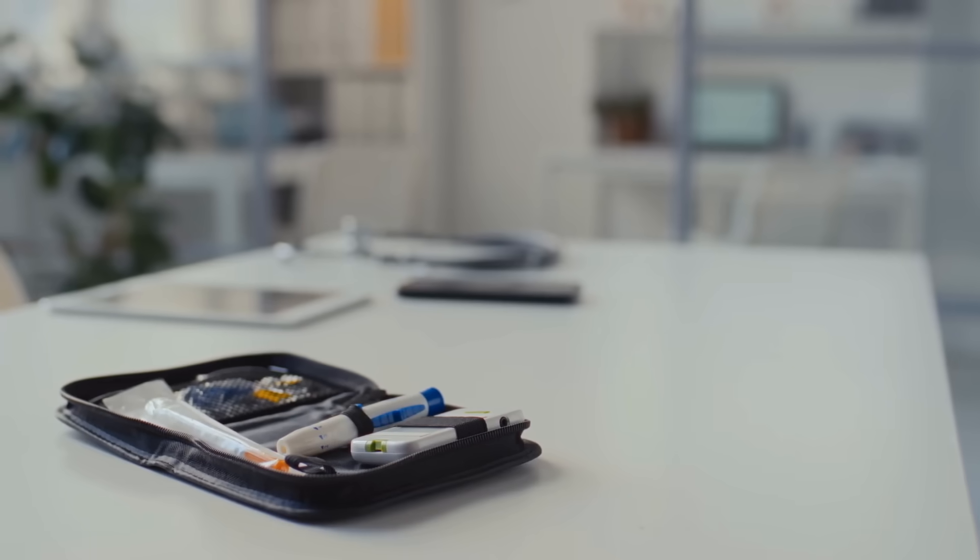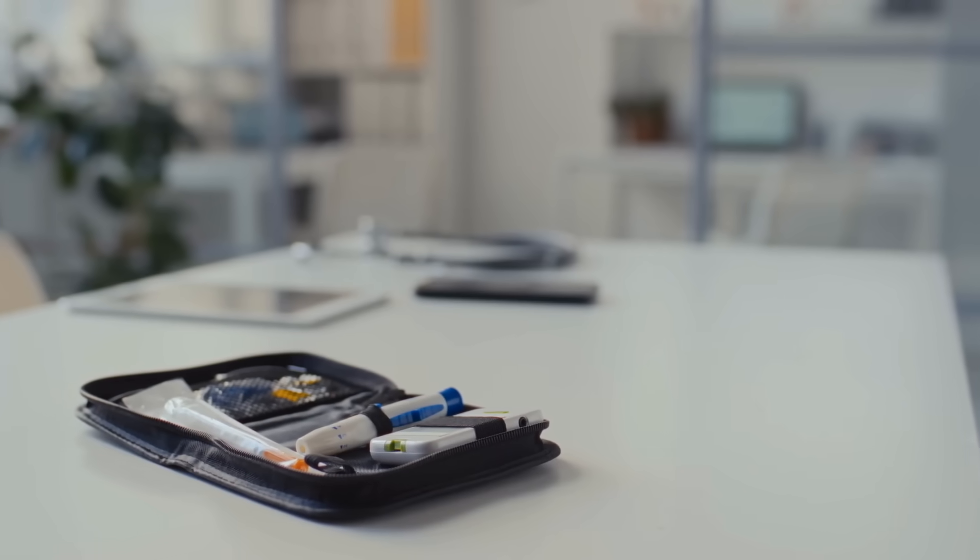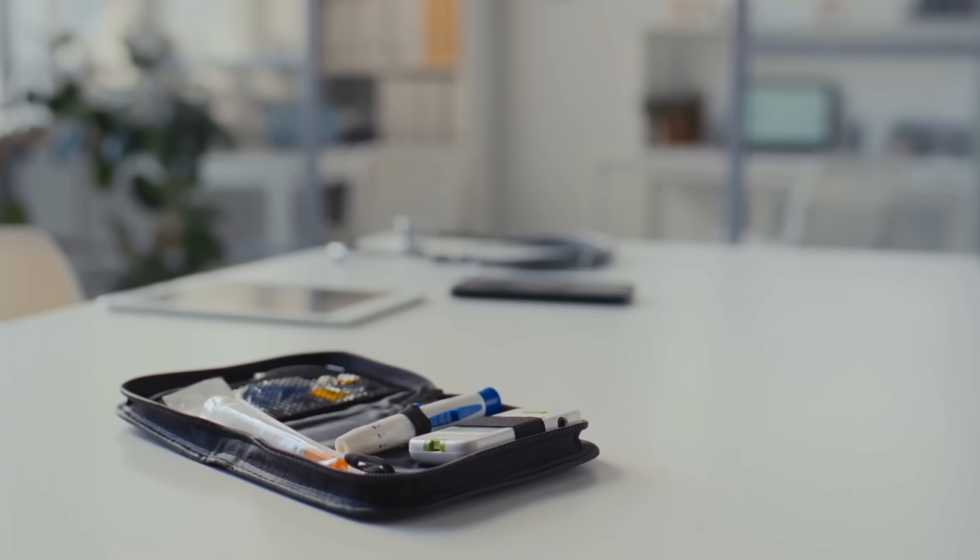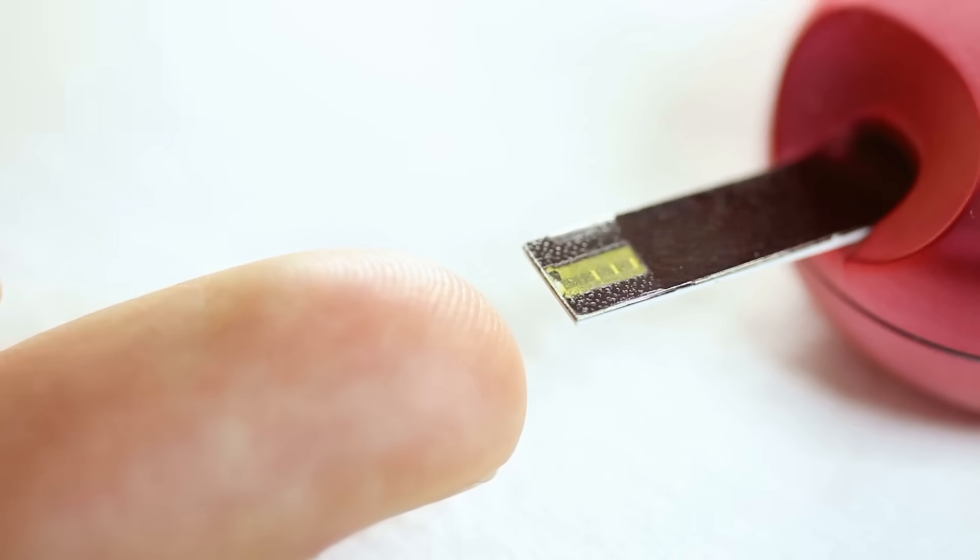Imagine carrying around a little device that can tell you something critical about your body in just seconds. For millions of people living with diabetes, that device is a glucose meter, or glucometer.